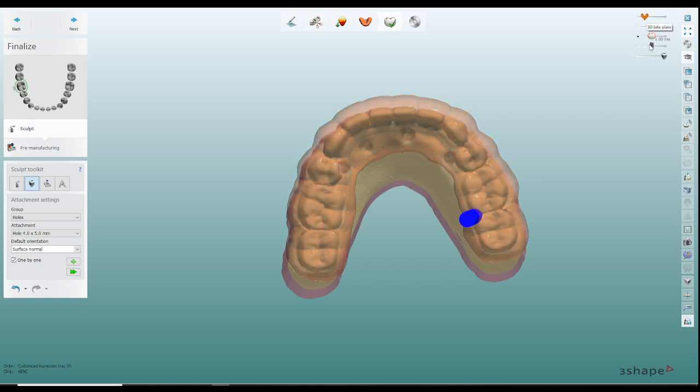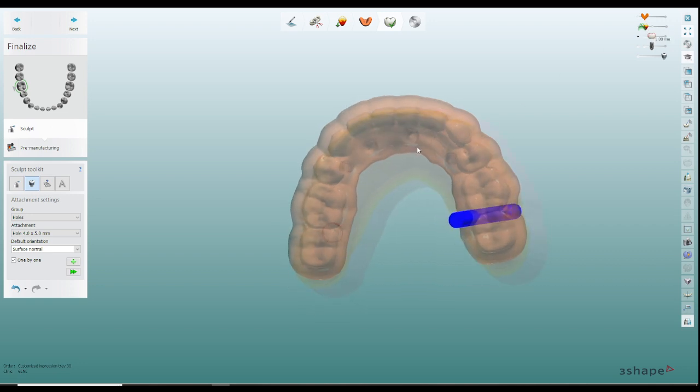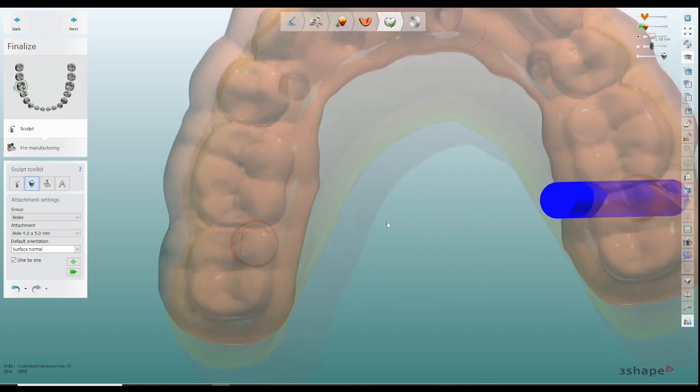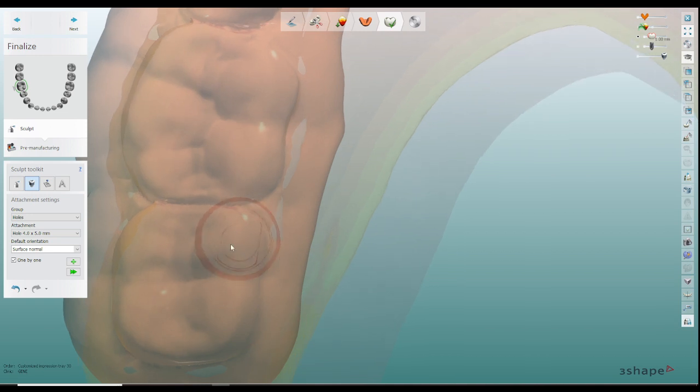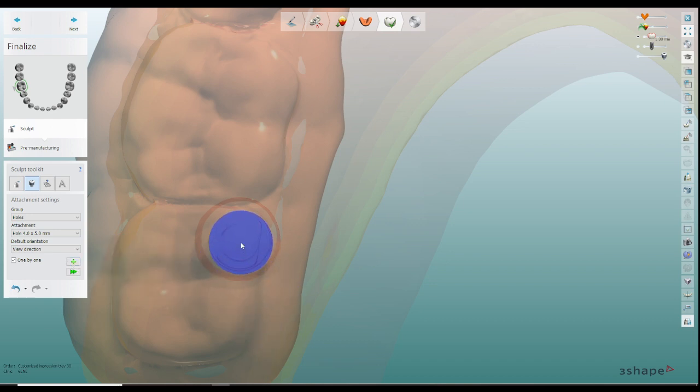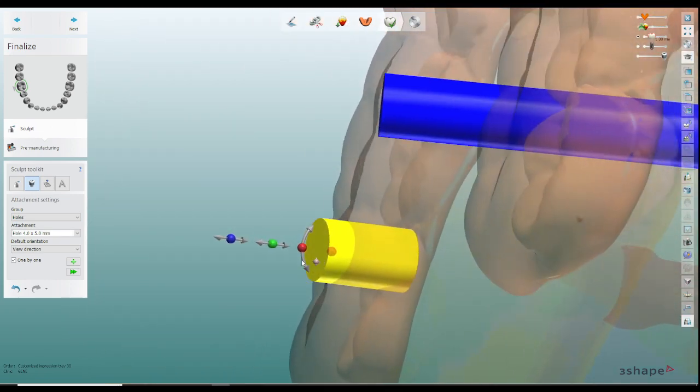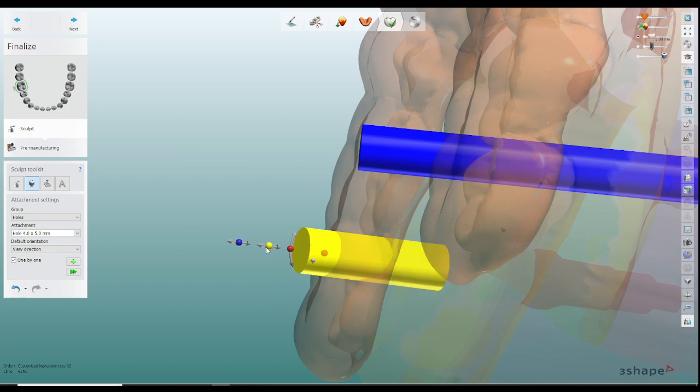The way I place them is I actually will make this way more translucent and I'll reduce the translucency on the model as well just so I can see the outline of my analog right here and that little rounded area that I shaved. So instead of surface normal orientation I'll change it to view direction and one by one so when I press plus I can line it up exactly to that dimension and when I click on it it lines it up.